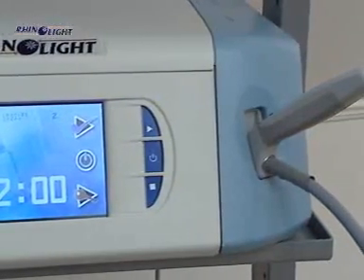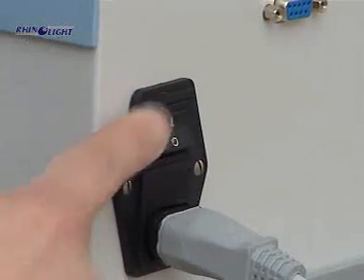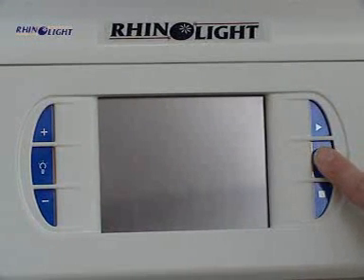The procedure of treatment is as follows. The device can be powered with the help of the main switch at the back of the set. Switching on is carried out with the help of the standby switch on the front of the set.